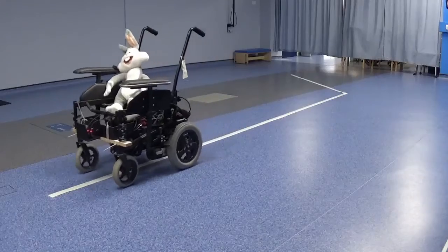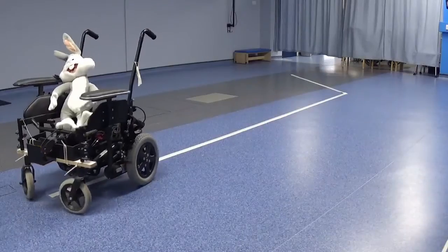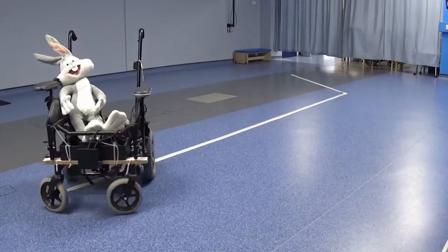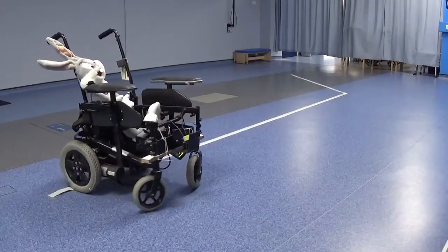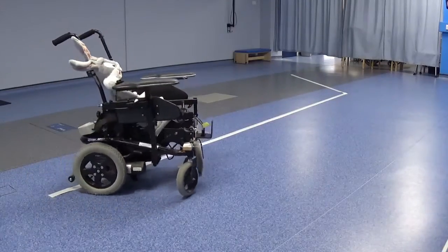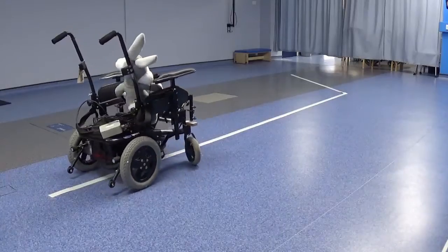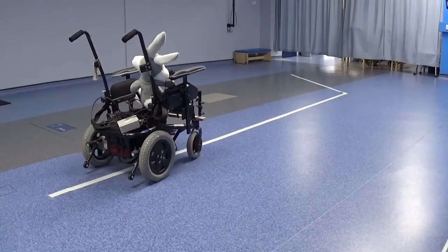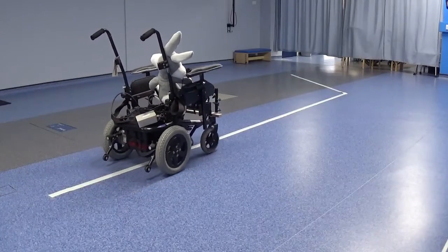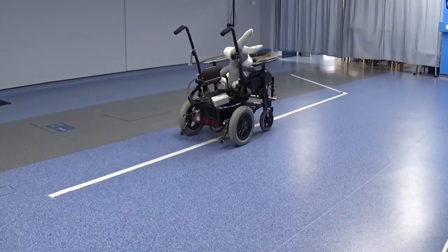Other methods to control a wheelchair requiring even less functional ability are available. It is possible to develop a system which requires almost no input from the user. At a simple GO command, this wheelchair will follow a reflective line that is laid out on the floor.